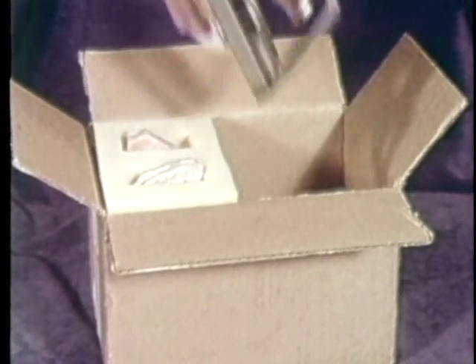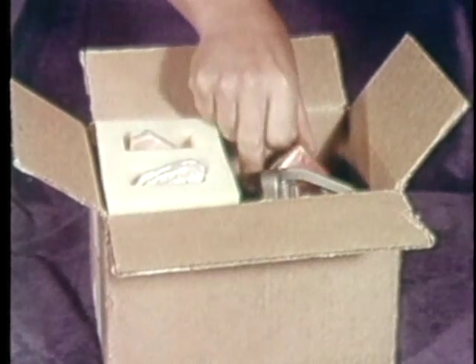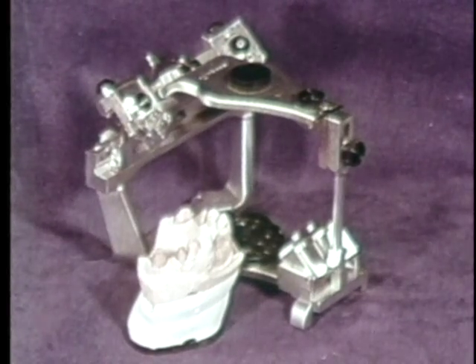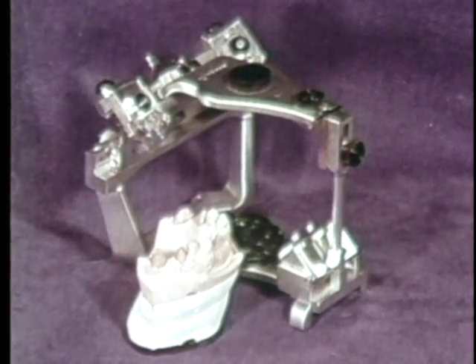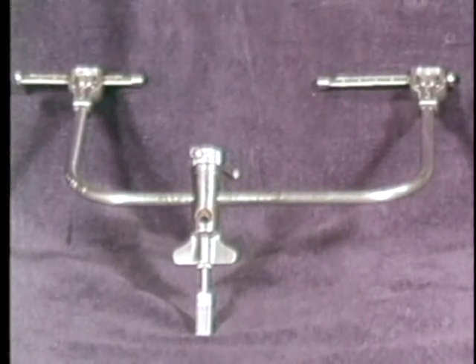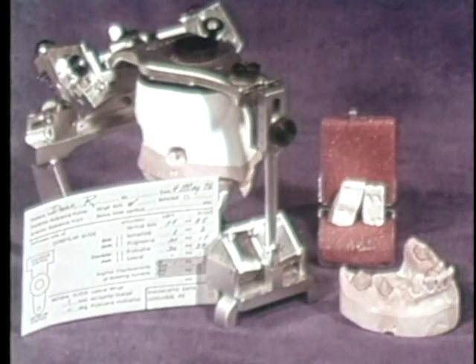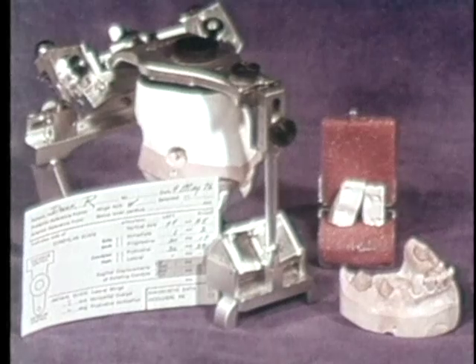Both the casts and the articulator must be shipped to the RDA accompanied by the jaw relation record. If a case must be constructed on a semi or fully adjustable articulator, it must be submitted on a mounting ring at the appropriate relation to the hinge axis. The axis can be arbitrary or pantographic. The mandibular cast and centric jaw relation record should accompany the mounting, and the condylar and incisal guidance settings should be noted on the prescription form.